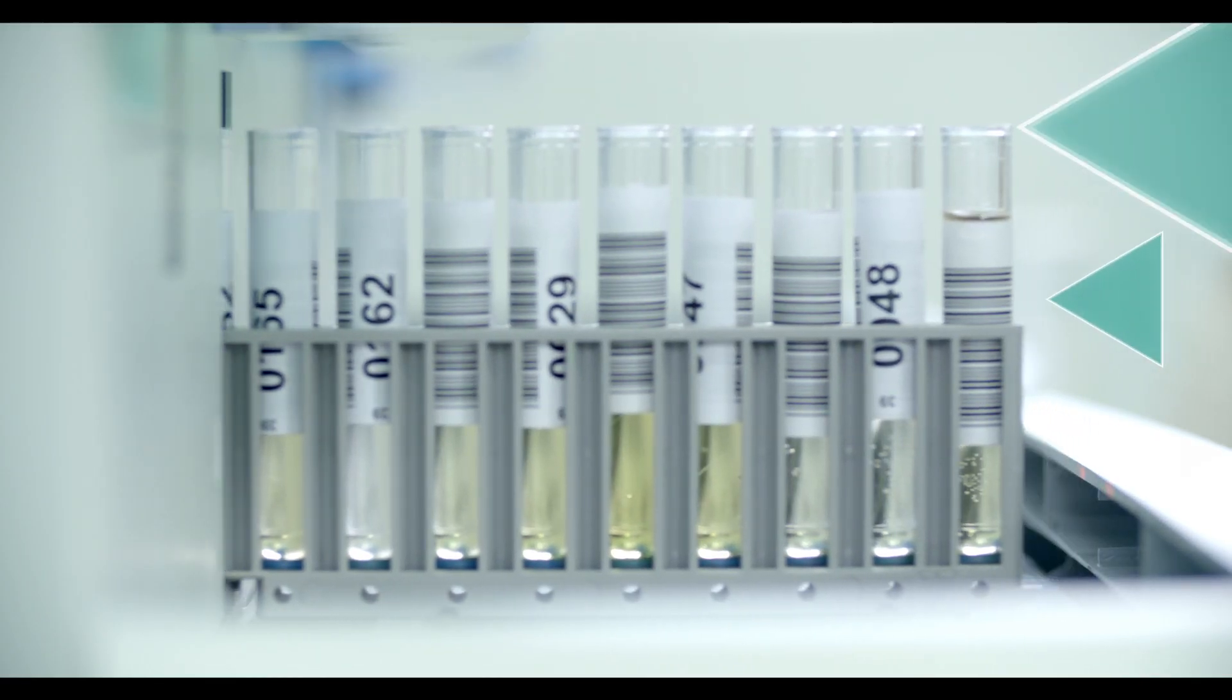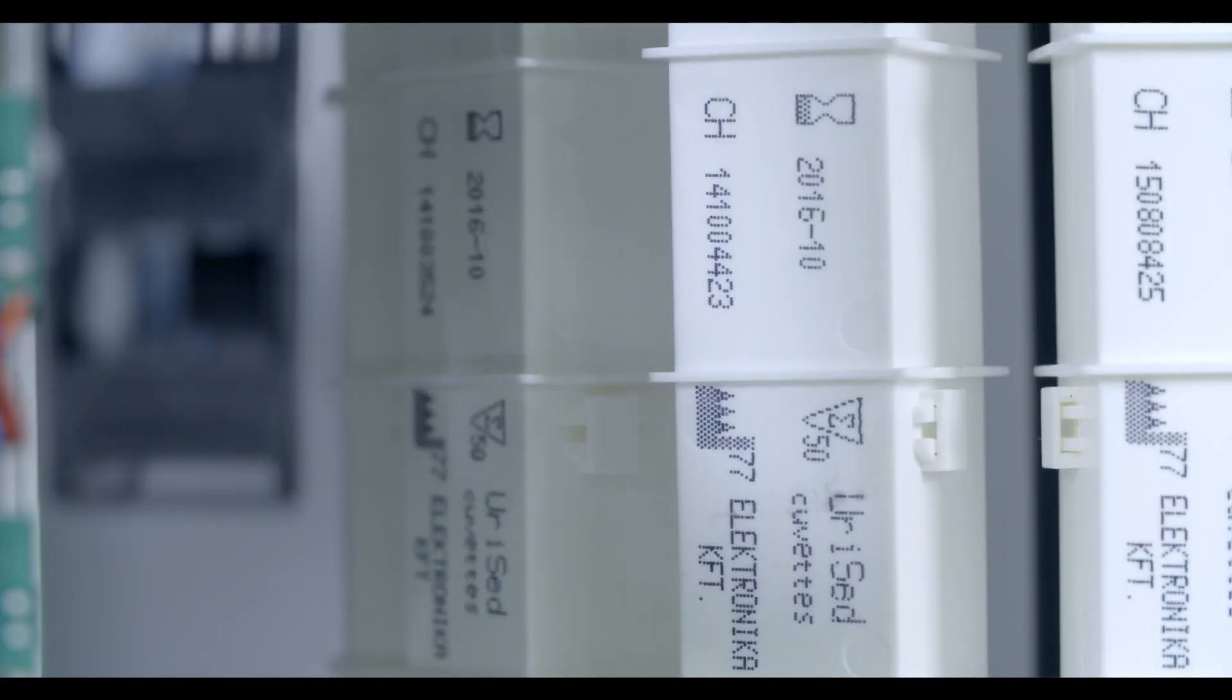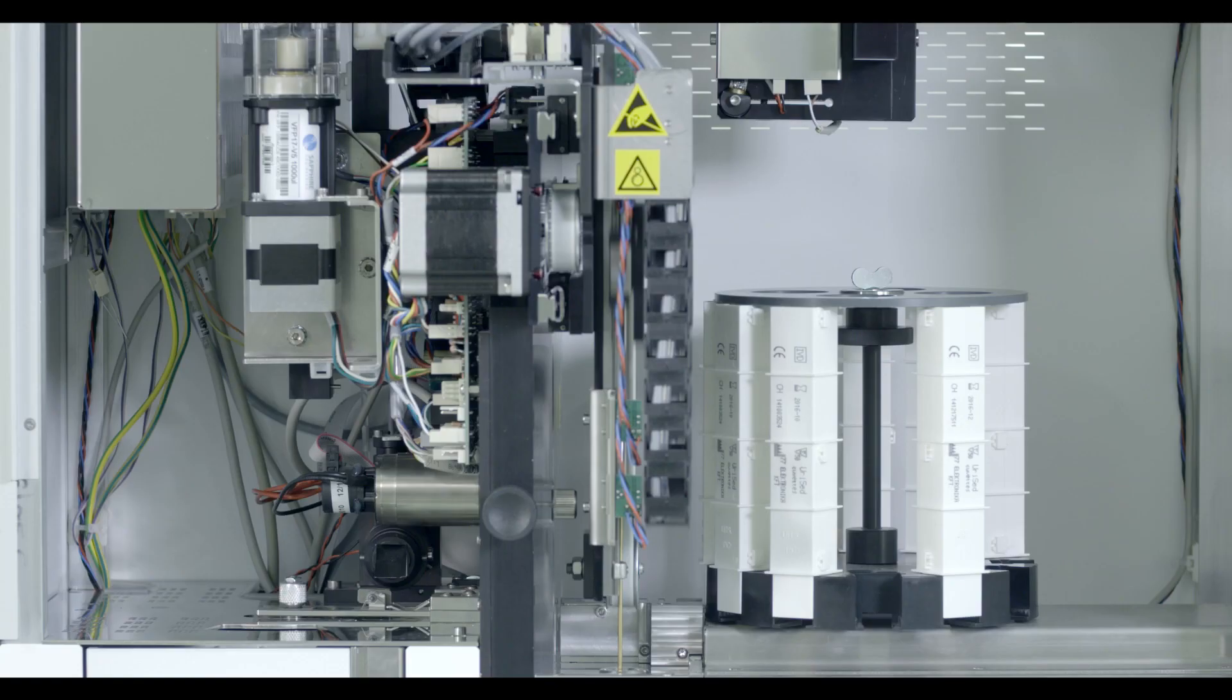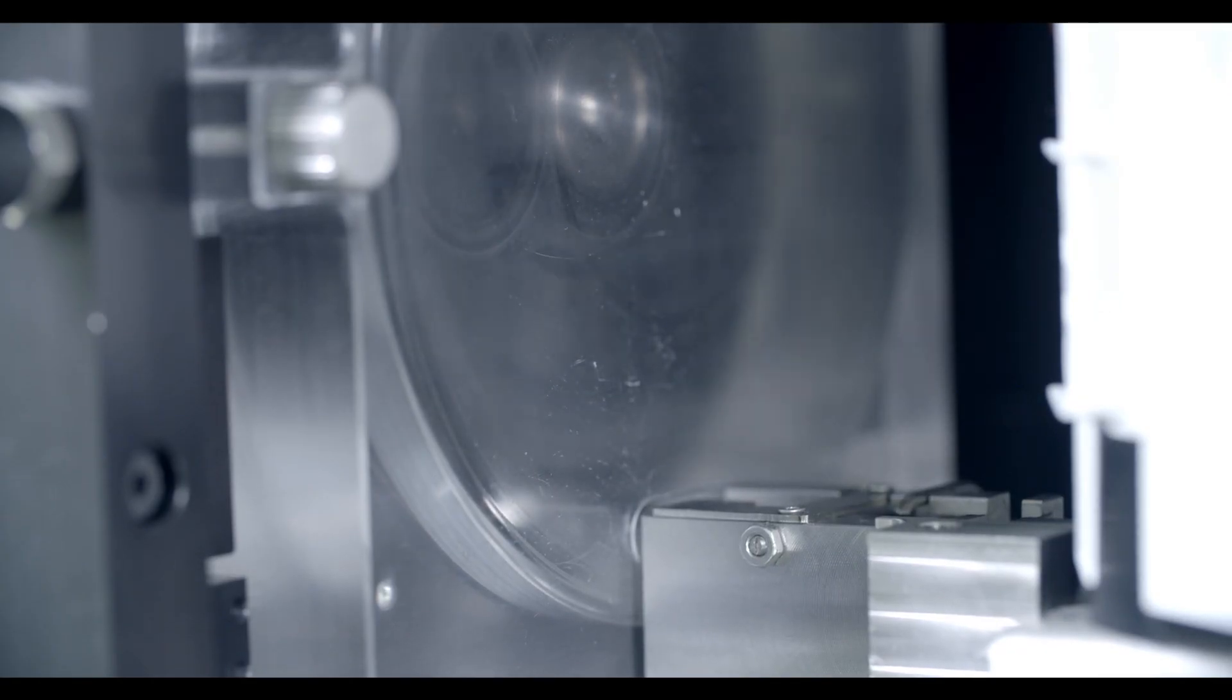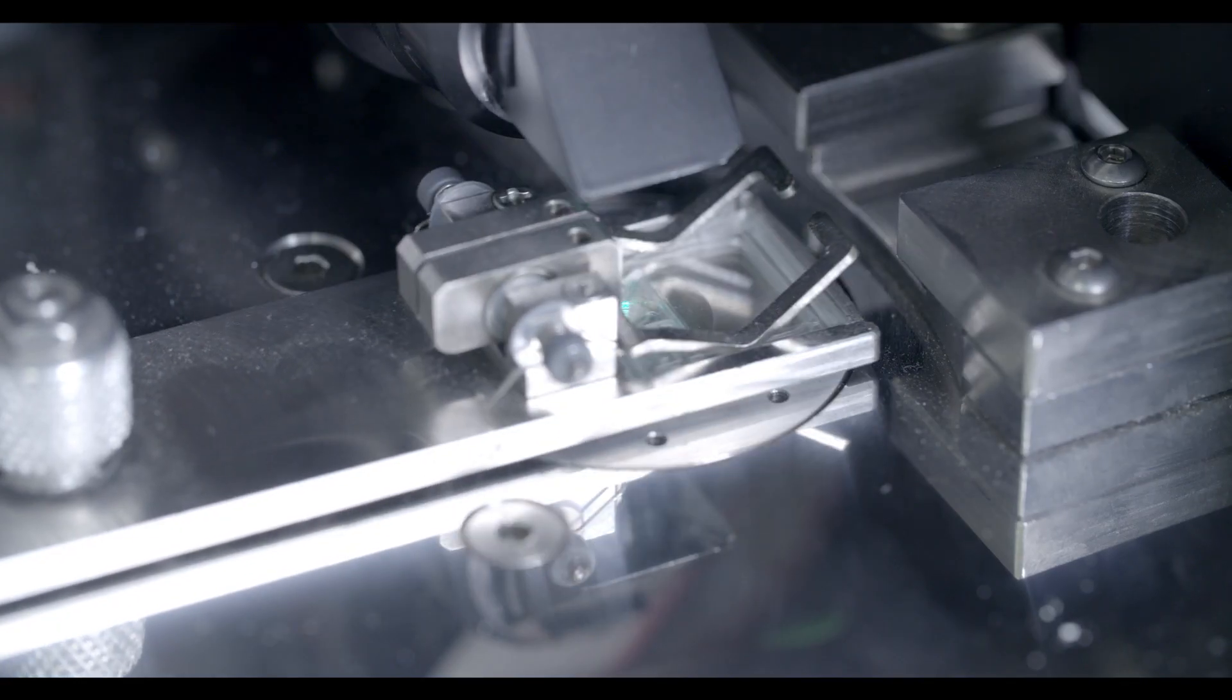UriSed3 performs sample preparation, produces whole view field microscopic images, and evaluates them using the Auto Image Evaluation module, which is a high-quality image processing software.